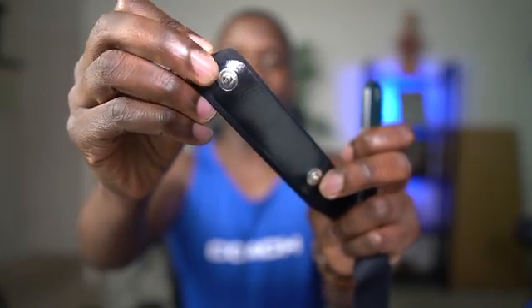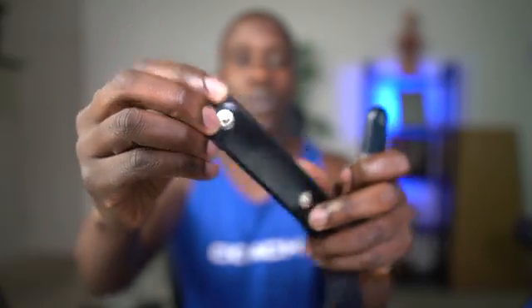The first thing you'll notice is how small this device is. There are two ways you can wear it: you can put on a chest strap and just strap it on, or you can attach two electrodes and stick it onto your chest. The first way is the easiest. If you don't want to use the electrodes, you can take this strap — you can see it has two little connection points to snap the device on. What I want to do is take a little bit of water and put it right at those connection points to help with catching the signal.